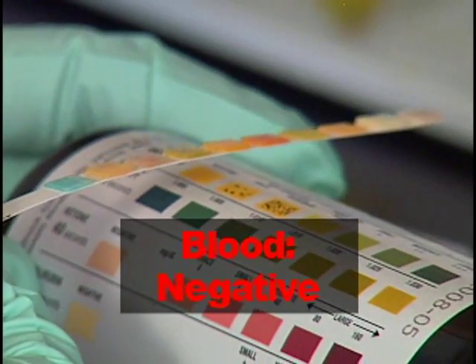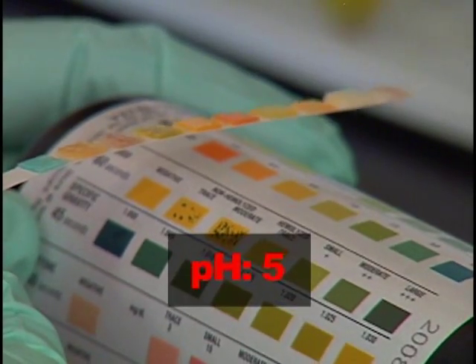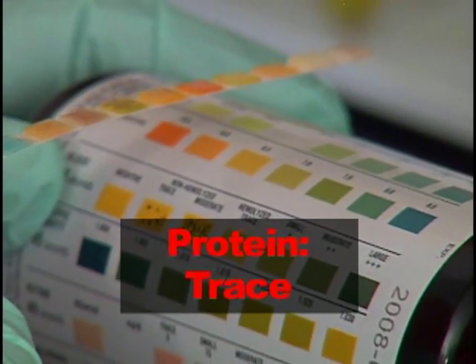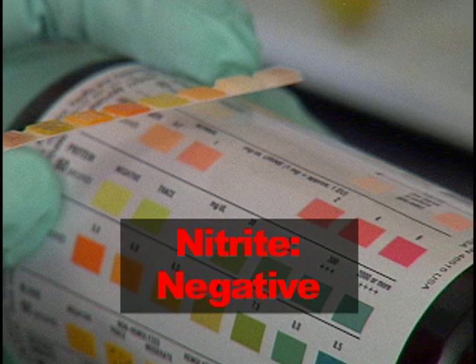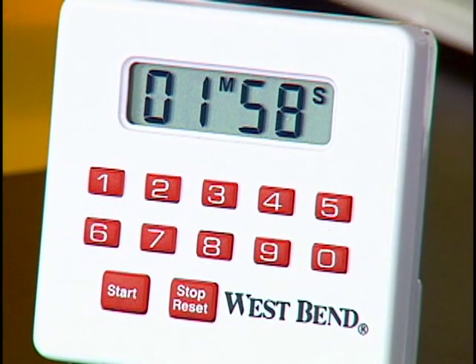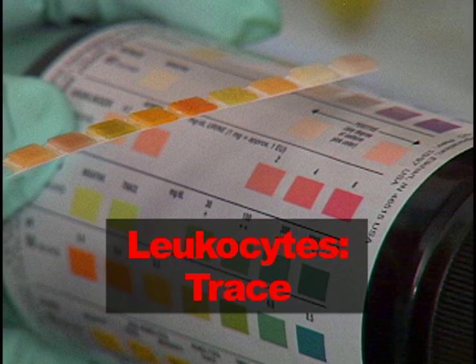The result for blood is negative. The result for pH is 5. The result for protein is trace. The result for urobilinogen is normal. The result for nitrite is negative. Read the results for leukocytes at 2 minutes. The result for leukocytes is trace.